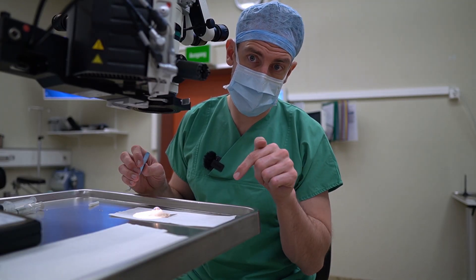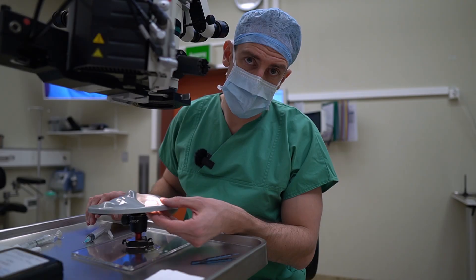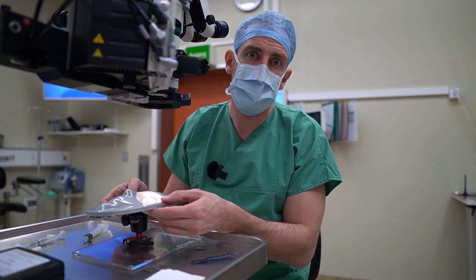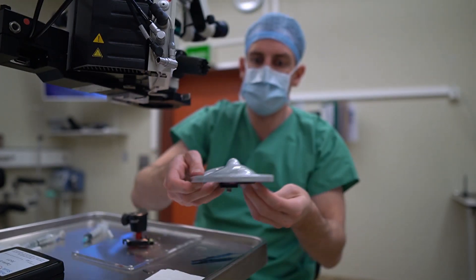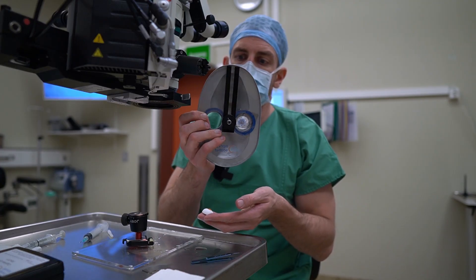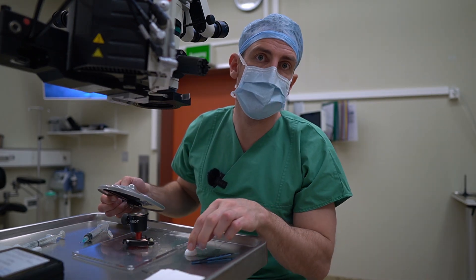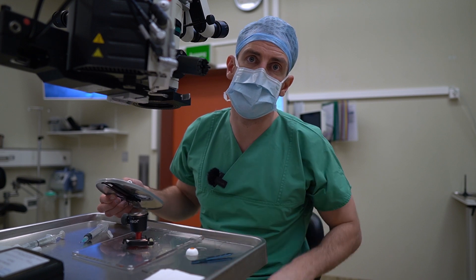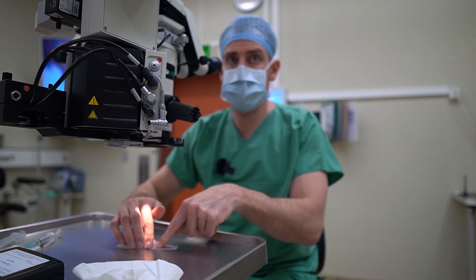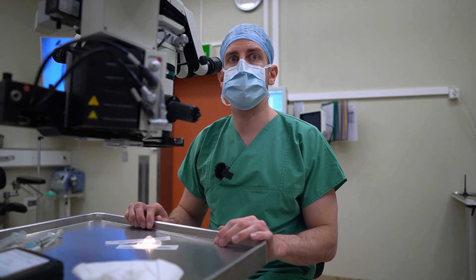If you use it without the head, you need a sticky surface, otherwise it just slides around. Here's another issue: because it's a two-part eye and this head has a hole on the bottom, the bottom part just keeps falling out all the time. You would need something like this but without a hole. If you put it on the table it keeps sliding around, so you kind of have to find a solution for that — take some tape and just tape it down, and then you should be good to go.